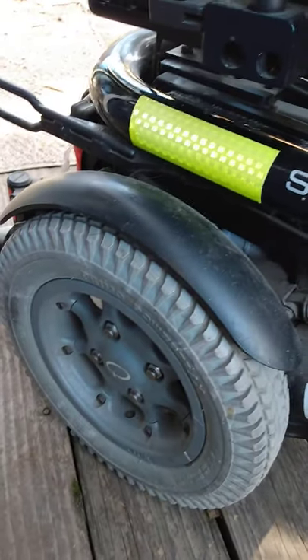For wheels and tires, I've chosen not to have inflated tires. Inflated tires give some cushioning over small bumps, but you're subject to flats — which I used to have and became frustrated with. So now I use solid foam-filled tires. My wheelchair is a rear-wheel drive; there are also front-wheel drive and mid-wheel drive chairs, with subtle differences that are quite significant in a typical day of maneuvering through the world.